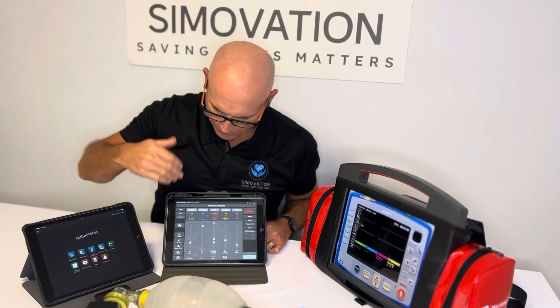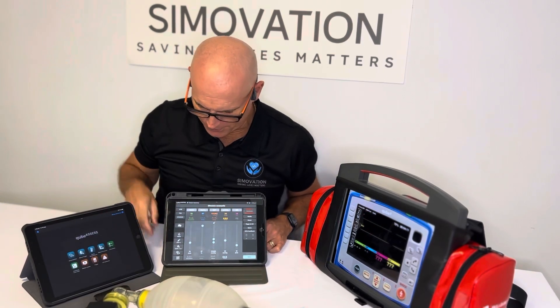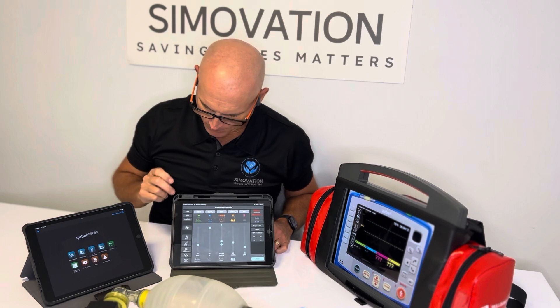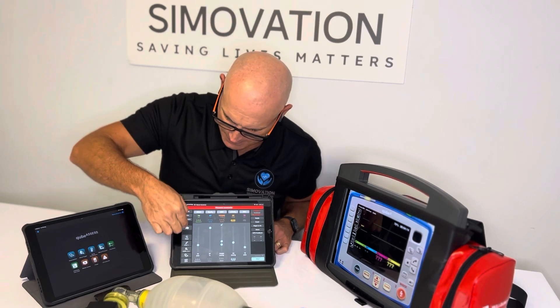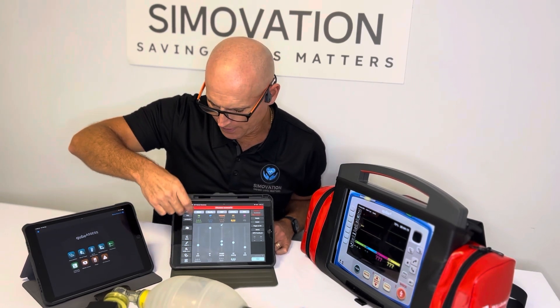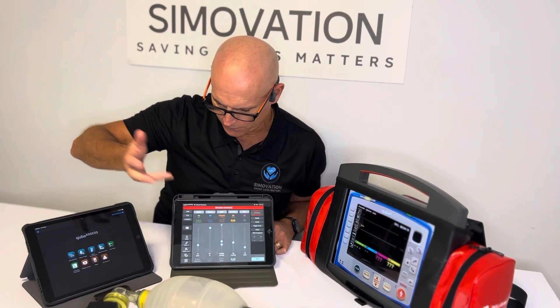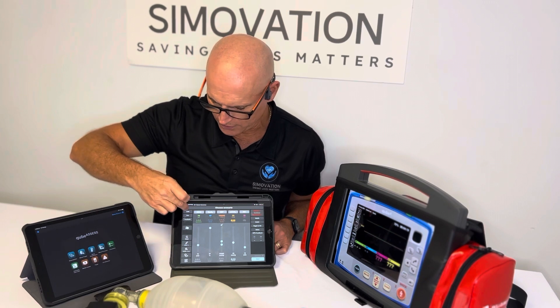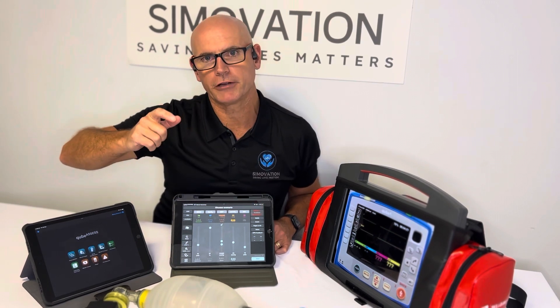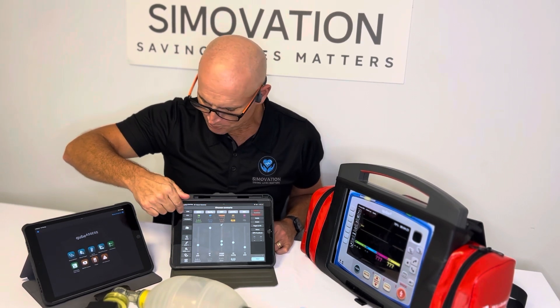I'll give you a very brief orientation to the graphic user interface for the instructor tablet. Down the left-hand side there are a series of interventions that you can make. So if you want to initiate CPR straight away in a scenario, you can tap on that button.